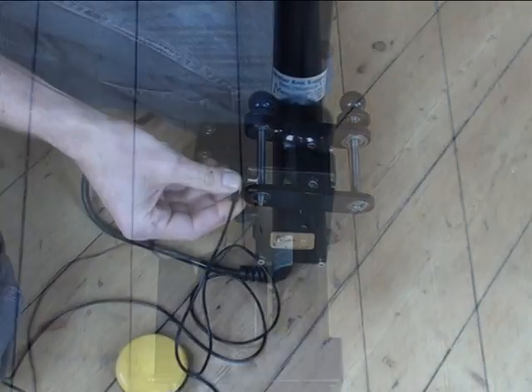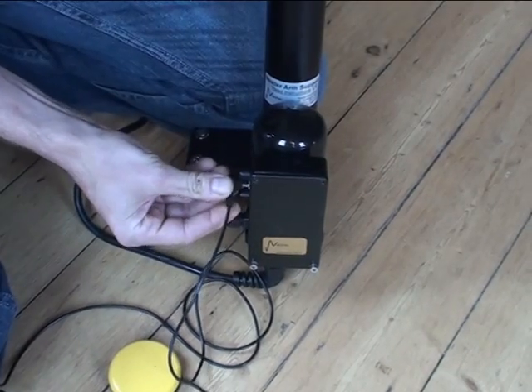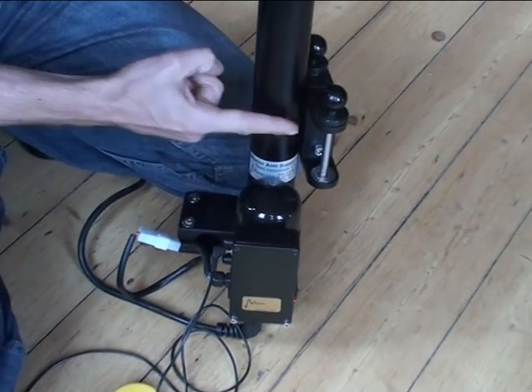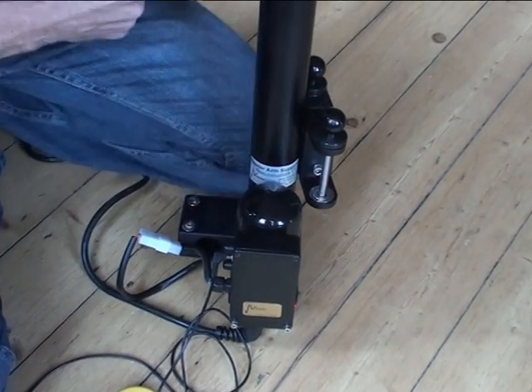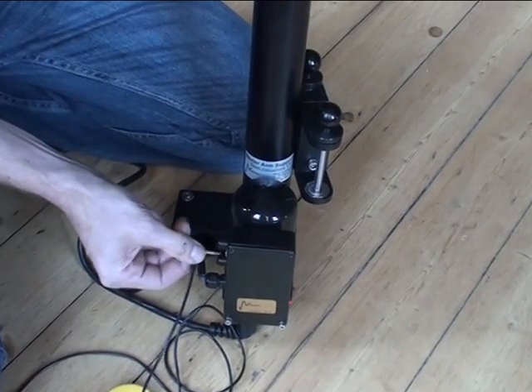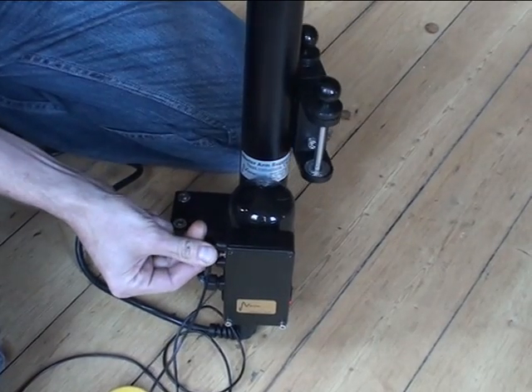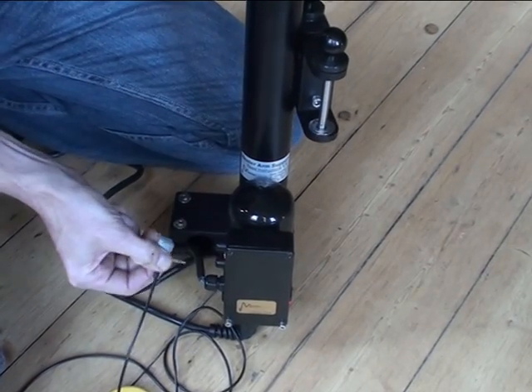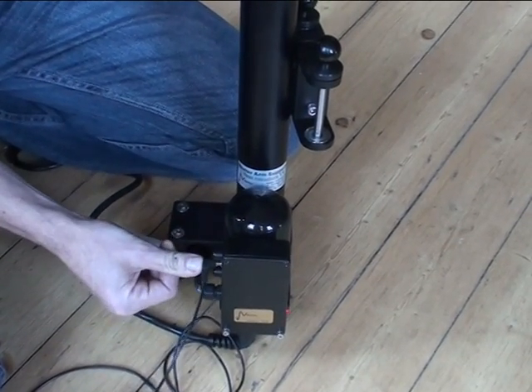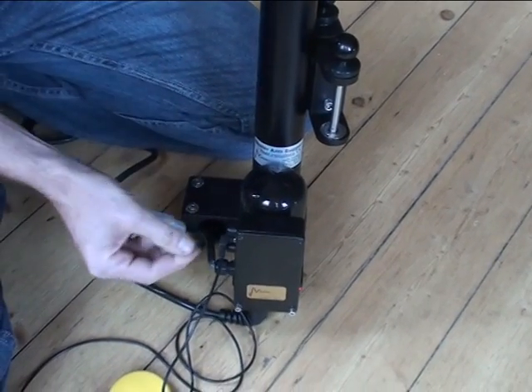When you plug the switch in you notice that if you don't plug it all the way in, the unit will move up and down on its own. All you need to do to make it work properly is to plug the switch all the way in.